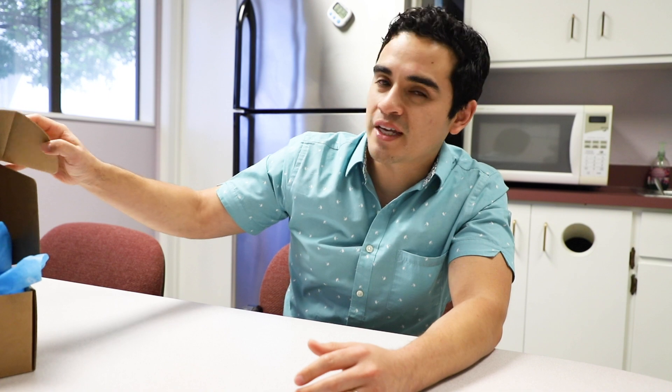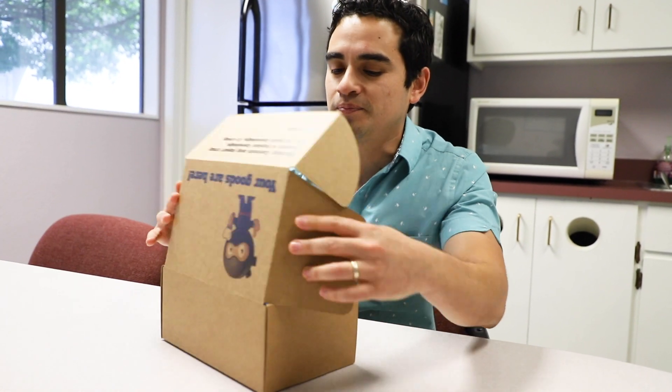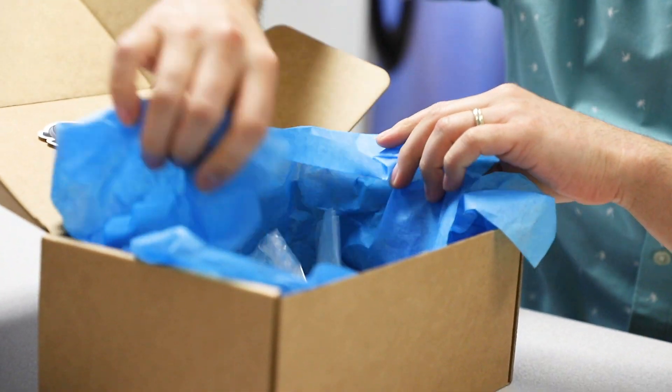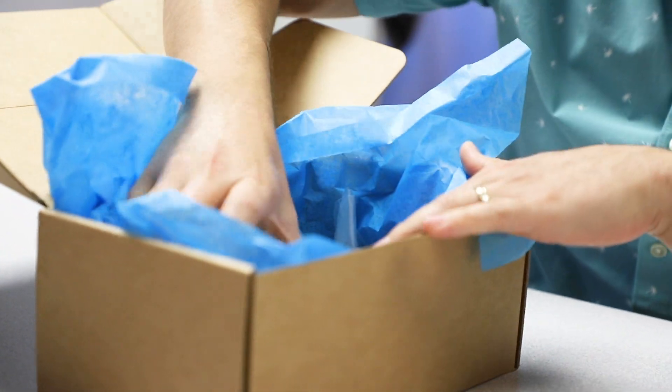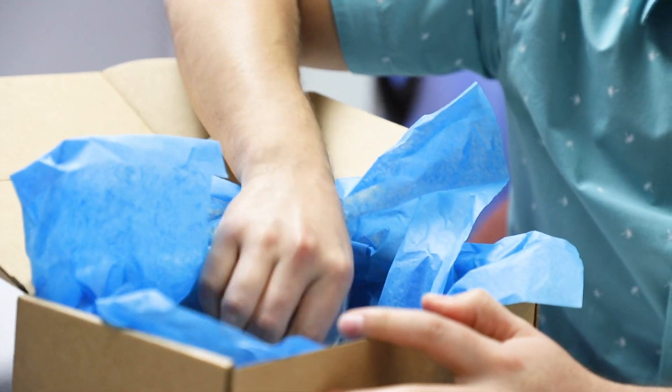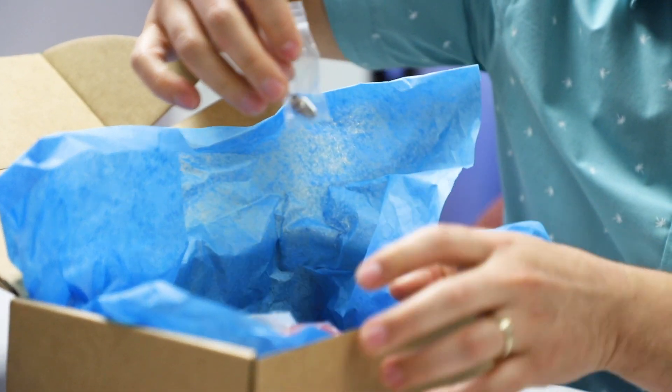By the way, the software I was using is Blue Sky Bio — it's free and really good, so I definitely recommend it. I also want to show you these little implant kits I'm putting together for anyone taking our online course. These implant boxes include little drills, insertion tools, mandible dummy implants — it's an add-on to the course. I was just trying to think of any way to make learning more convenient, and I think this would be a really cool way to do it. Reach out to me or shoot me a comment.